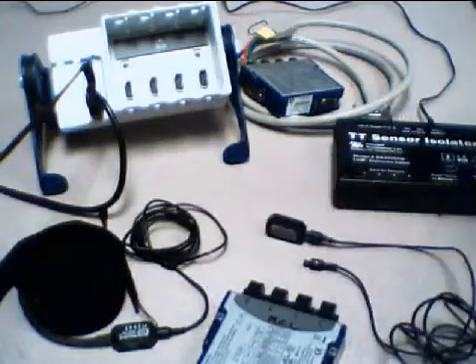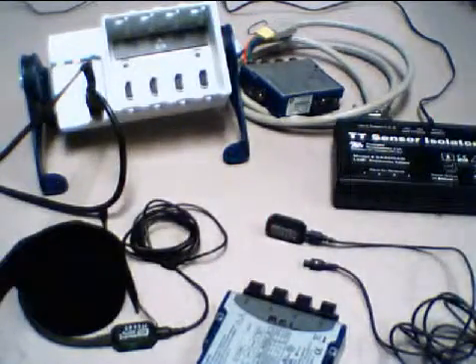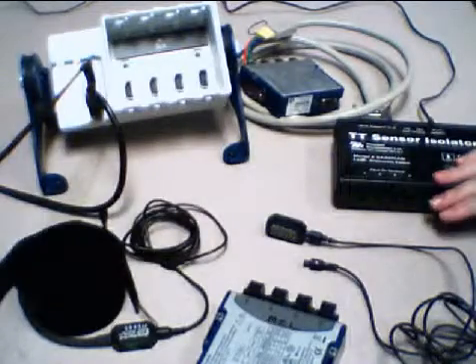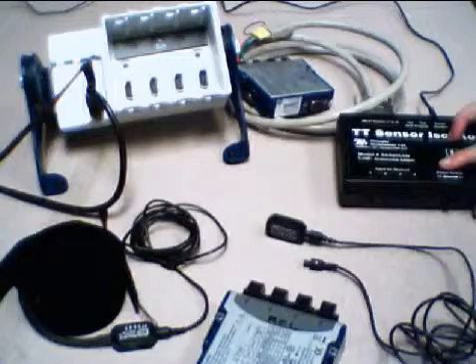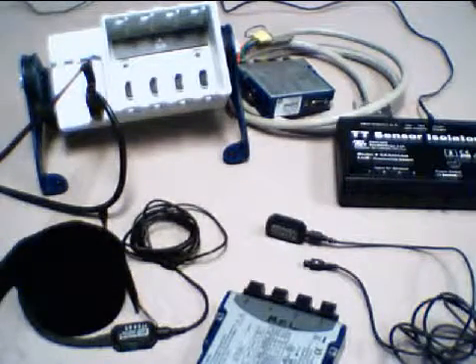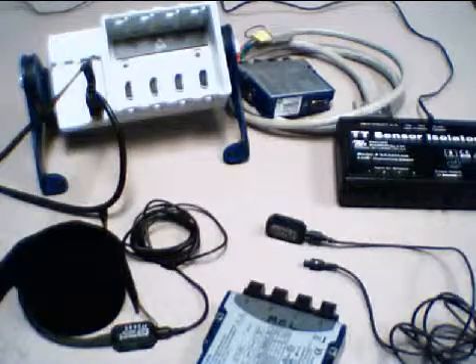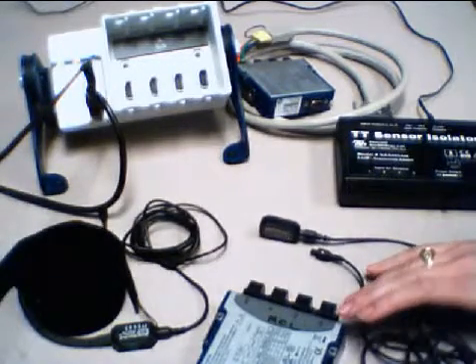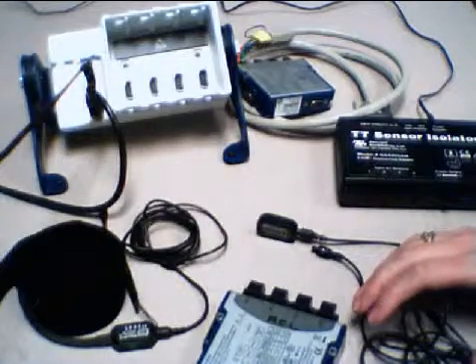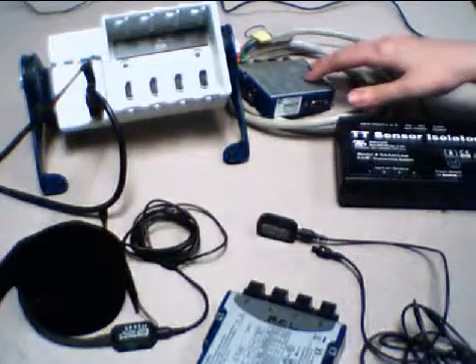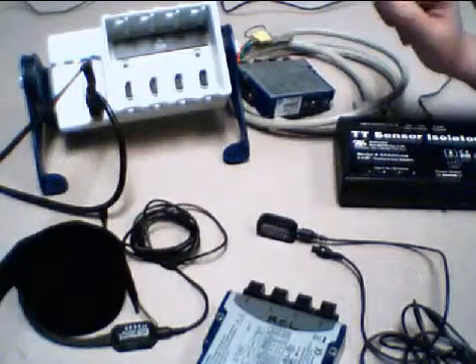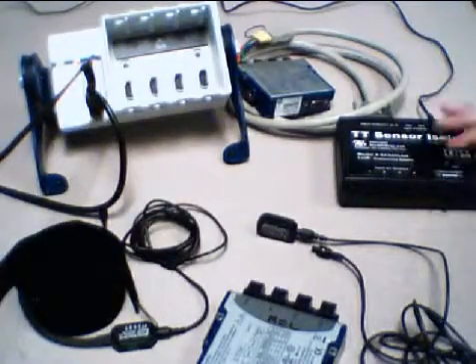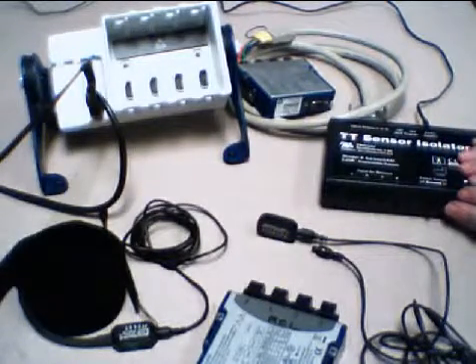That's one way to do it if you want to power the sensors on your own. However, I recommend going with the Thought Technologies sensor isolator which we can see right here. Basically this is going to be an interface device which provides electrical isolation for our sensors. It allows the Thought Technologies sensors to be safely interfaced with the analog outputs of line powered systems such as our compact DAC system.